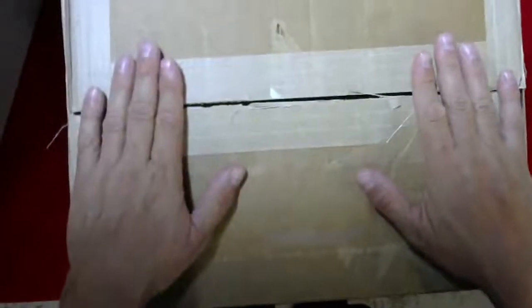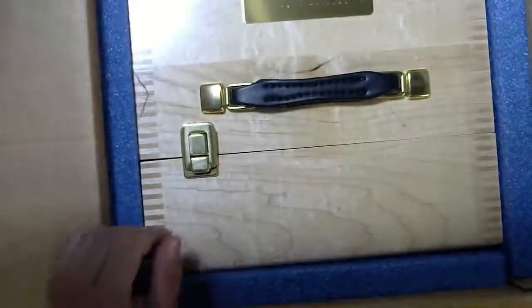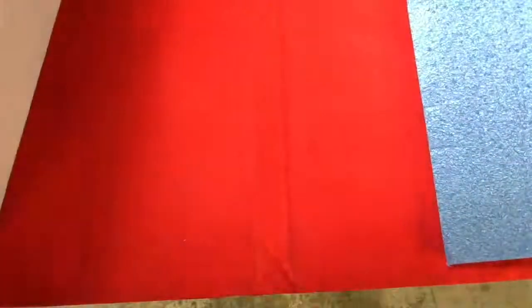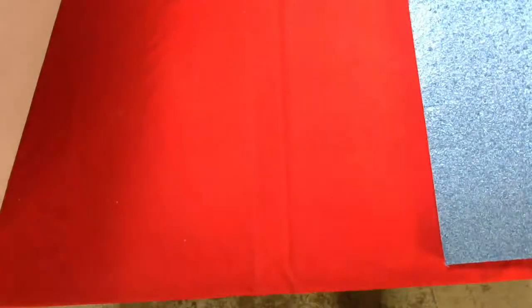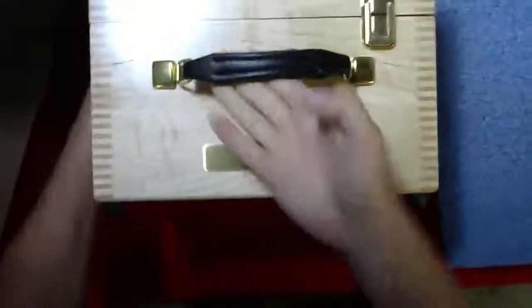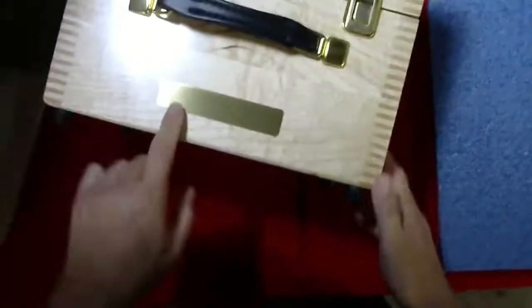Hi, Steve here from CSG Medical. Today we're going to be doing an unboxing on a special item. It comes well packaged as you can see, and this particular product comes from a company called the Phantom Laboratory.